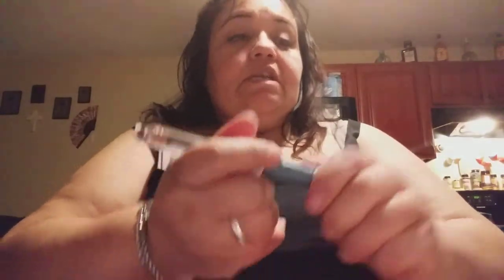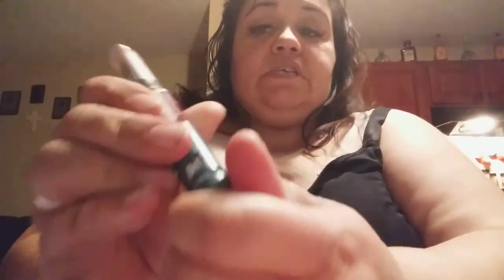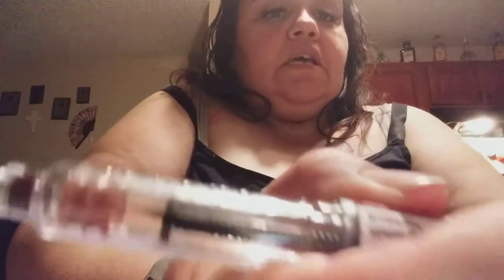I've been reusing it and all I do is just push this piece in, push it up like this, and then I twist it clockwise all the way. See, look at this black thing here — just watch it. See how it's going backwards? It's going to take some time, but it's going backwards.